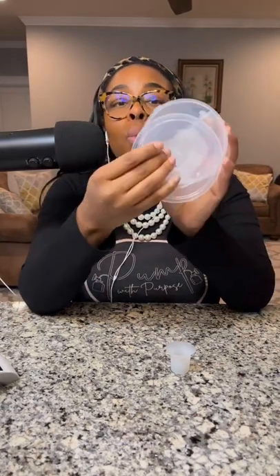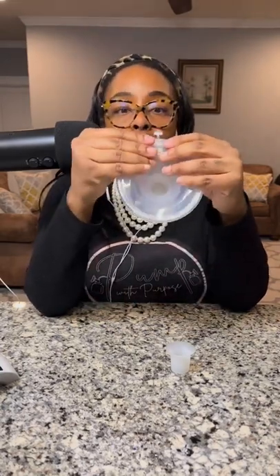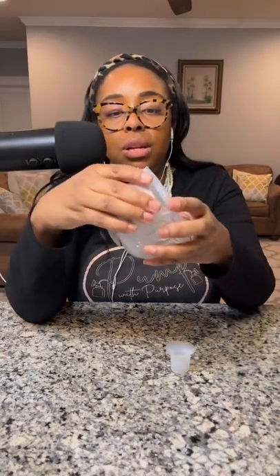For the flange — this is the 27 — you want to make sure the top is aligned and it's on the outside, sealing it all the way around. It's very important you do not want your milk to come out, so please make sure this is secure all the way around. Then close down the top, put the flap inside to protect the milk, and pop the top on — it's good to go.